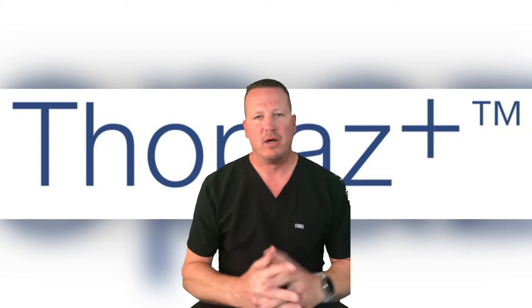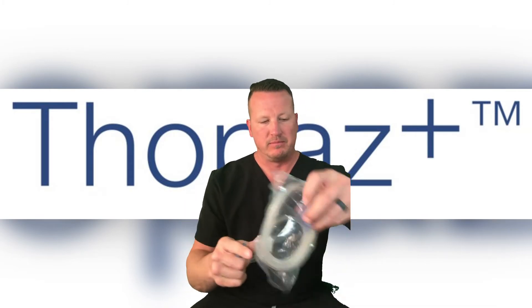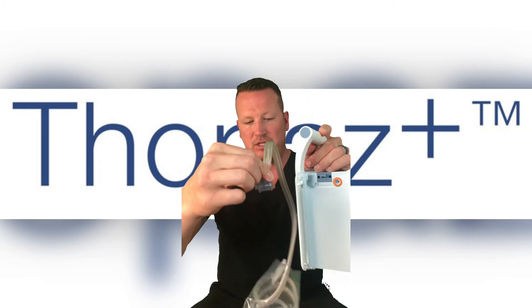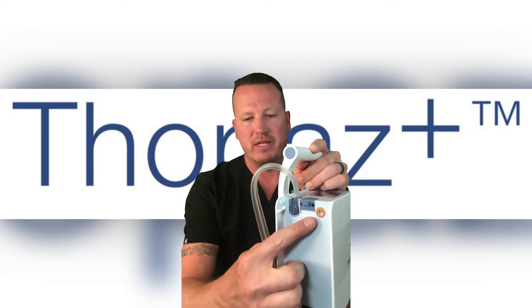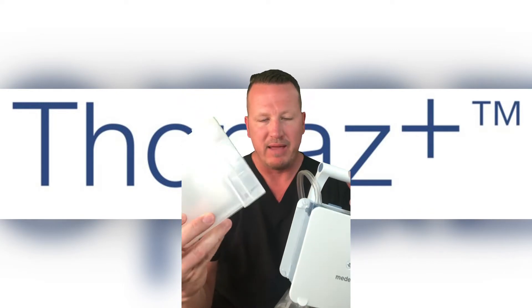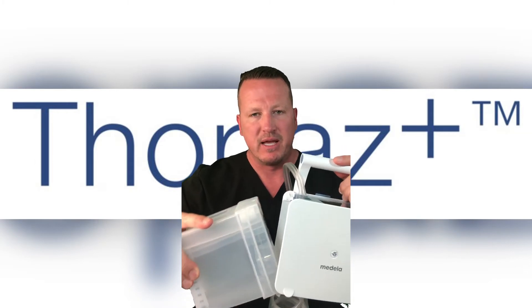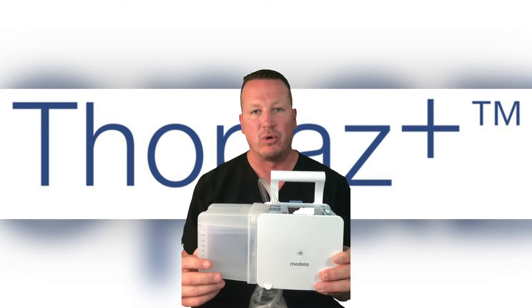To assemble Topaz Plus while maintaining aseptic technique, take the Topaz connector end of the tubing facing up and slide the small end into the suction port on the canister side of the device. Ensure that the orange O-ring is present — also known as a seal check. Install the canister right side up and feet first into the channels at the lower edge of the canister-facing side of the device, then rock and lock the canister into place until you hear a click, ensuring a tight connection.